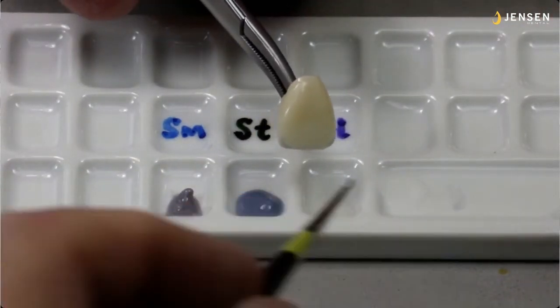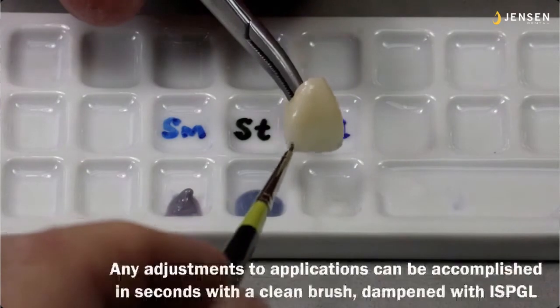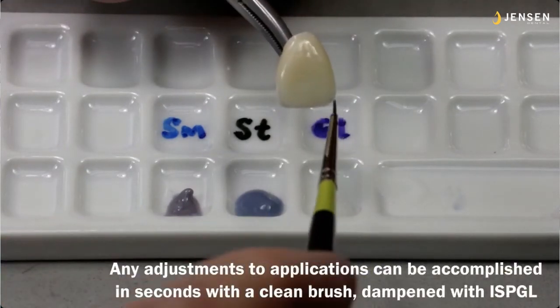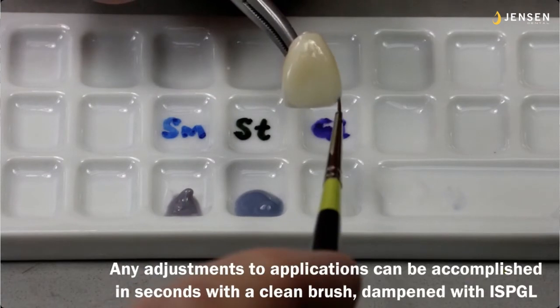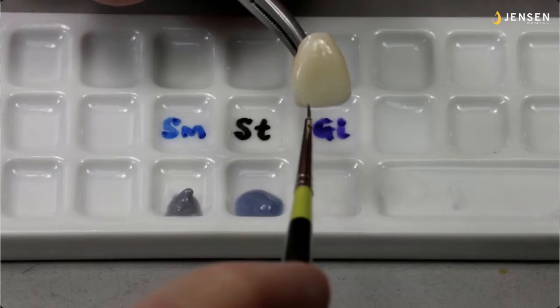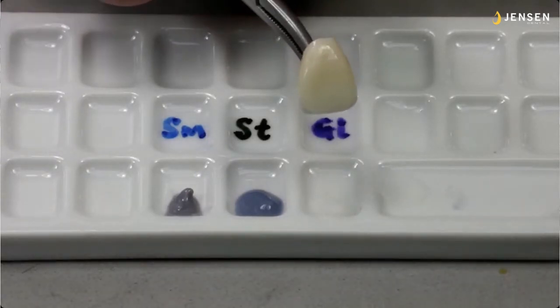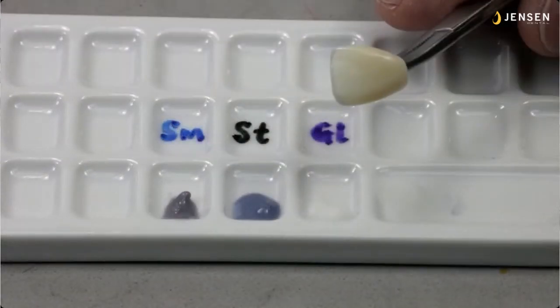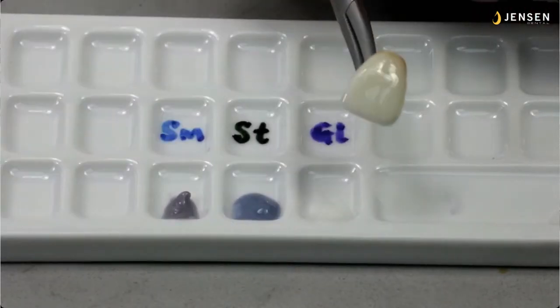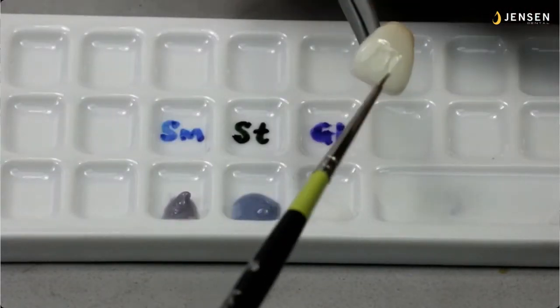We're going to do that with the color, so it'll flow off. And you see me here touching it up. Any adjustments to the application can be accomplished in seconds with a clean brush that you wipe, get your water out of it, and then you dampen it with the in-sync paste glaze liquid. This way it won't grab the colors and you can slide them around. So you see I've adjusted it here and I have a nice little fine line.